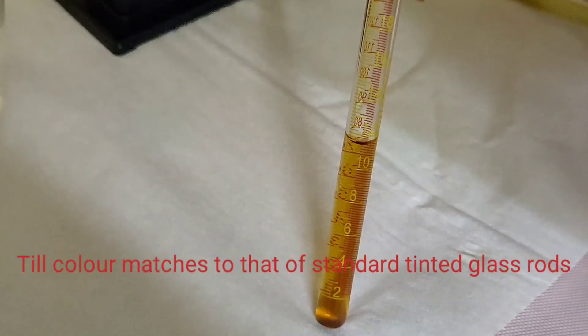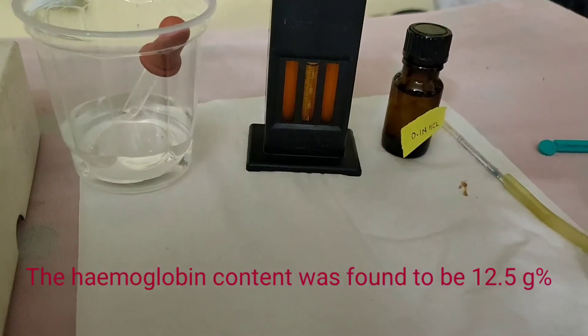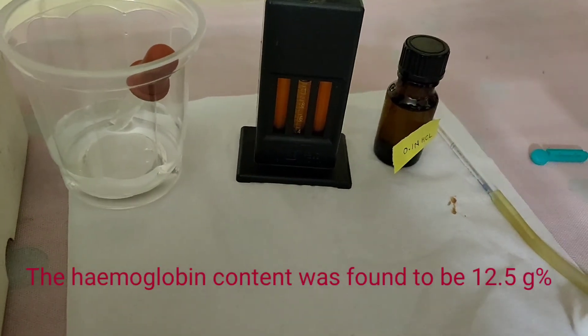Then, read the reading. So, the hemoglobin content was found to be 12.5 gram per cent.